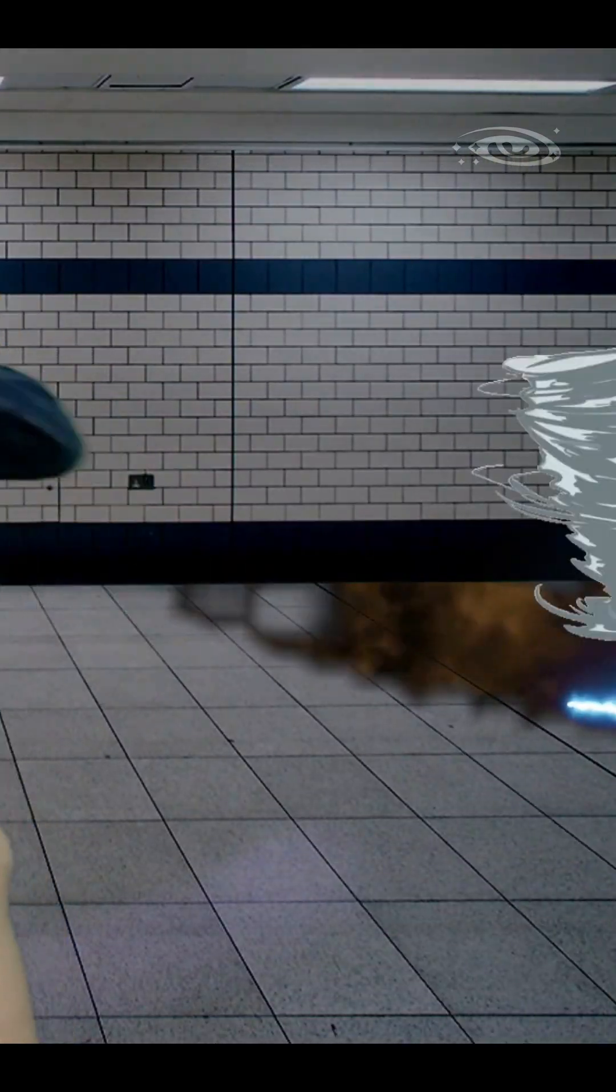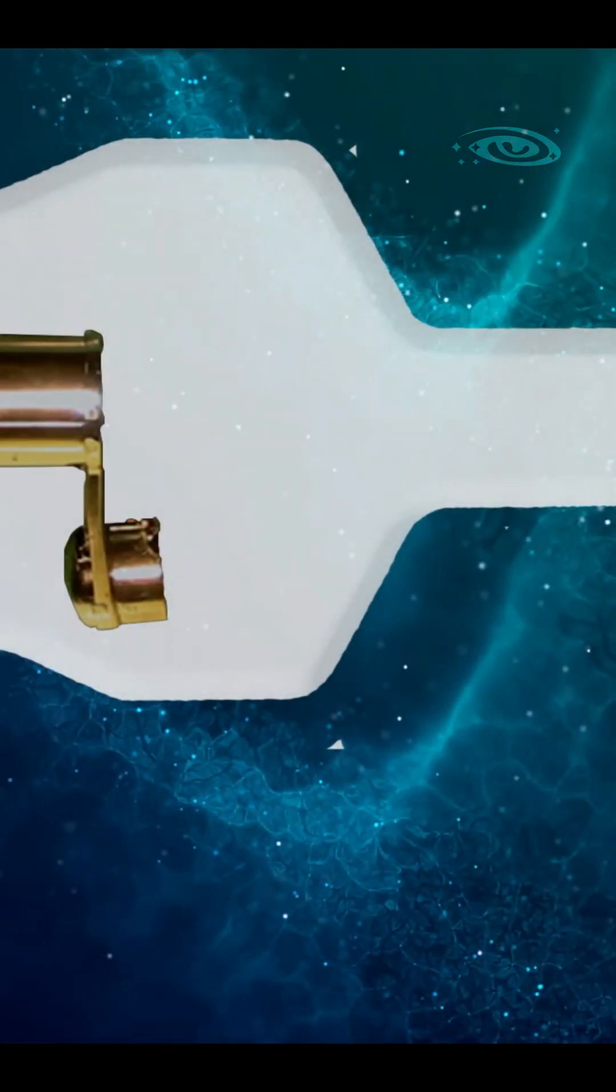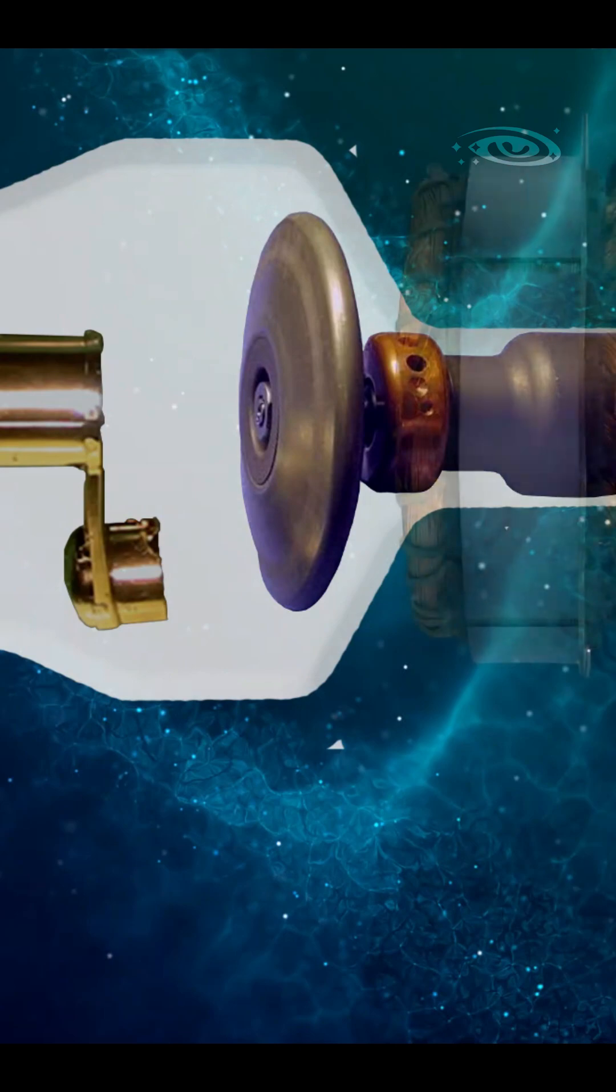In this lecture, we'll see about the rotating anode x-ray tube. The x-ray tube is made up of four major components: glass envelope, cathode, anode, and the stator. Let me make the model of this rotating anode. Now let's go and make it.